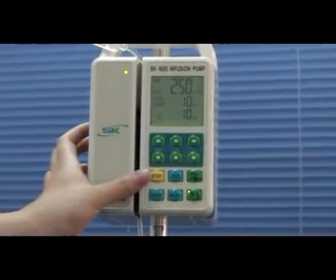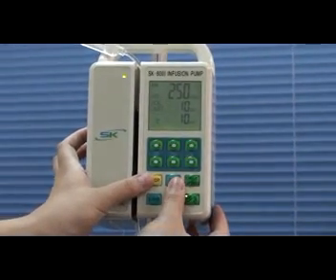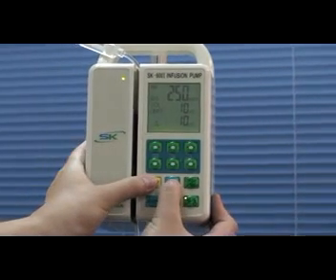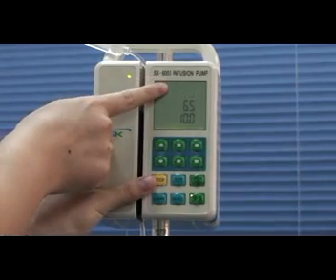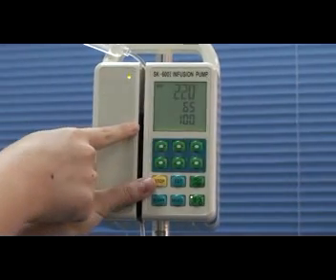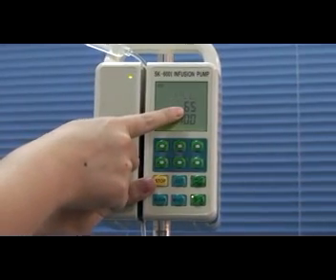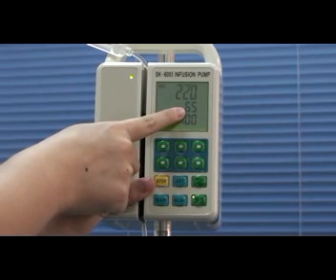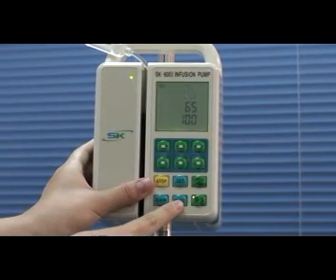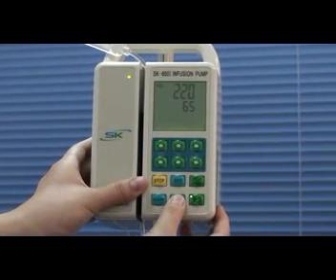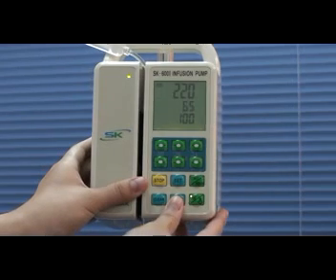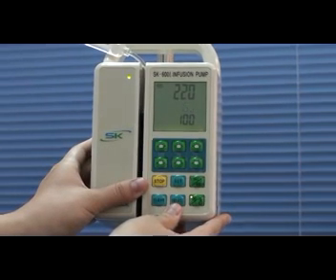Press stop and set keys together. You can see 3 parameters showing in the LCD. The middle one is accuracy value. Use select key to choose this value and increase it by 2.